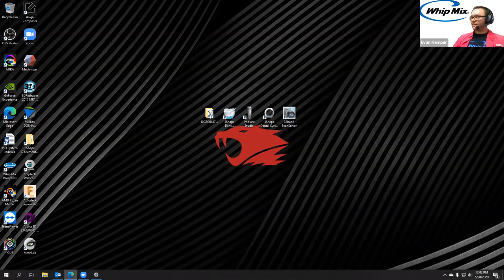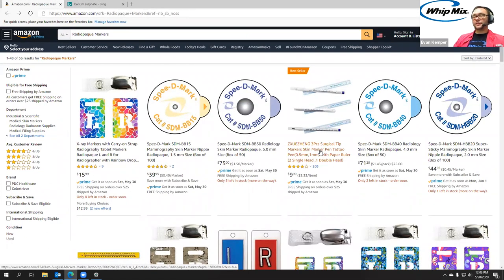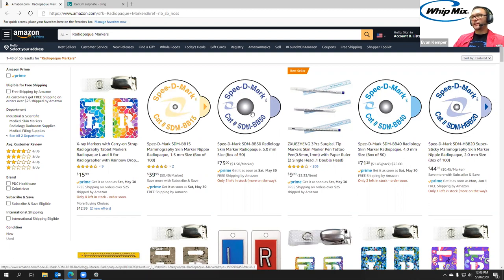The first thing I want to do is talk about the differences with the tissue-borne guide and some of the extra things you'll need. With the tissue-borne, you'll need the CT scan still, but you're also going to need an existing denture CT scan. There are two different scan steps. The first one, you're going to have the existing denture in the mouth and place about five radiopaque markers — little stick-on ones. You could also embed metal BBs. Those will essentially serve the same purpose; you put them on the lingual side of the denture, equally spaced around the arch.